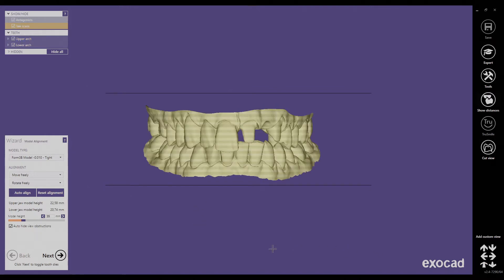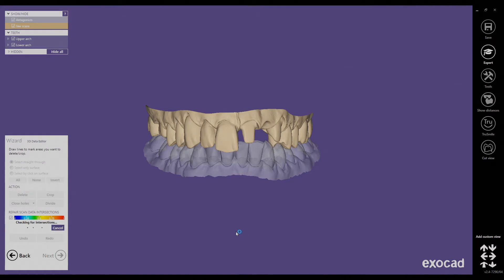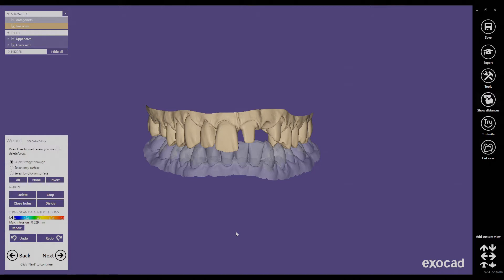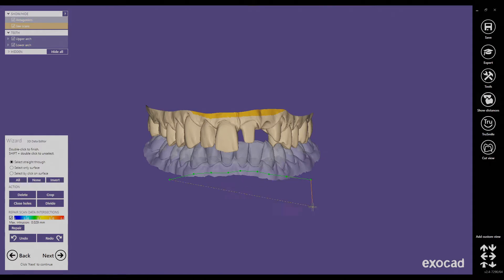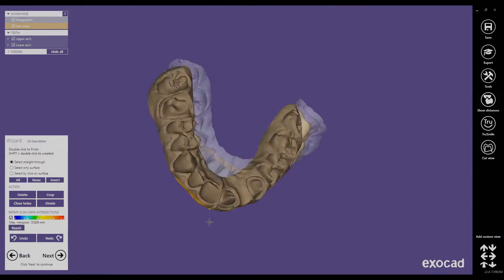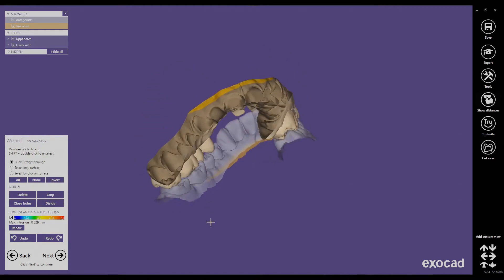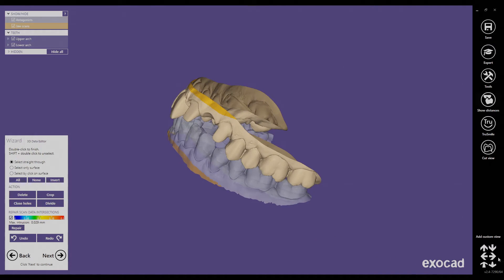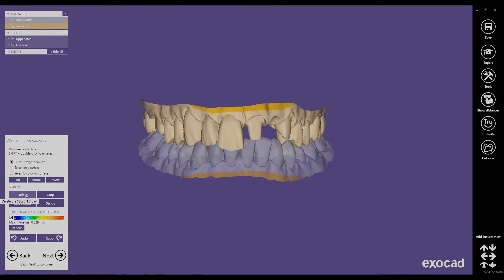We check again from the front view, and if we are happy we click on next. In this next step we can clean up our scan files and remove unwanted parts by left-clicking and dragging. I am removing more of the soft tissue in the anterior region for the same reason — I don't want to be forced to angle the dies. I am using the select-through mode, and we have to double-check that we have not accidentally selected anything we wanted to keep. We click on delete to get rid of the selection.